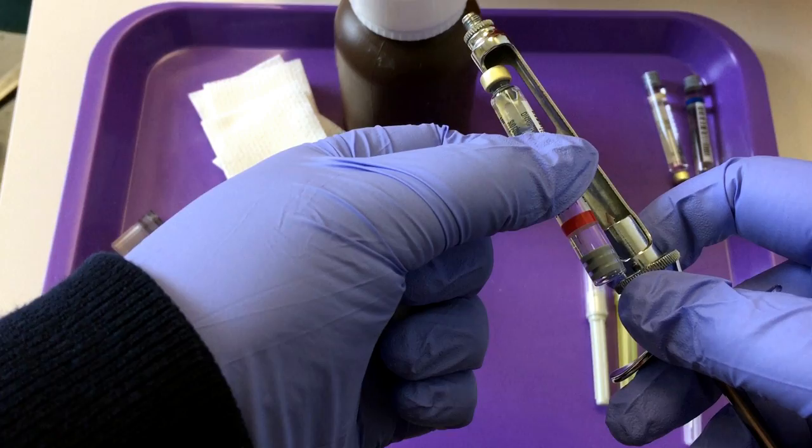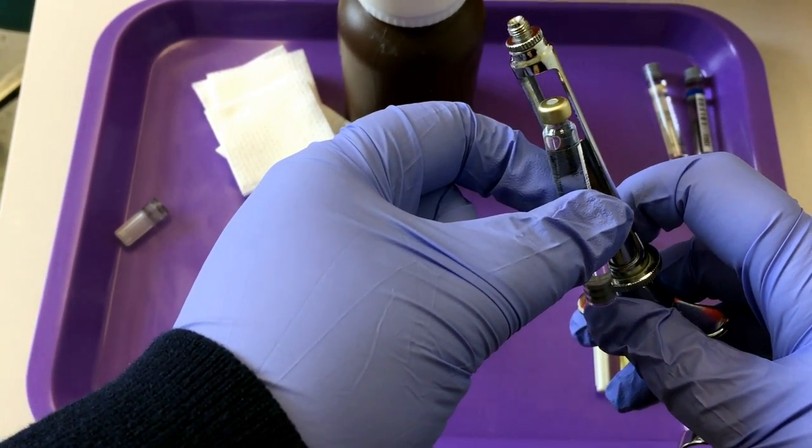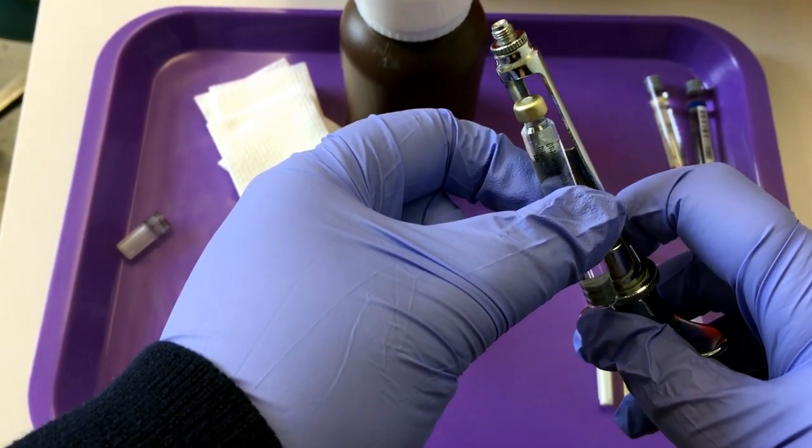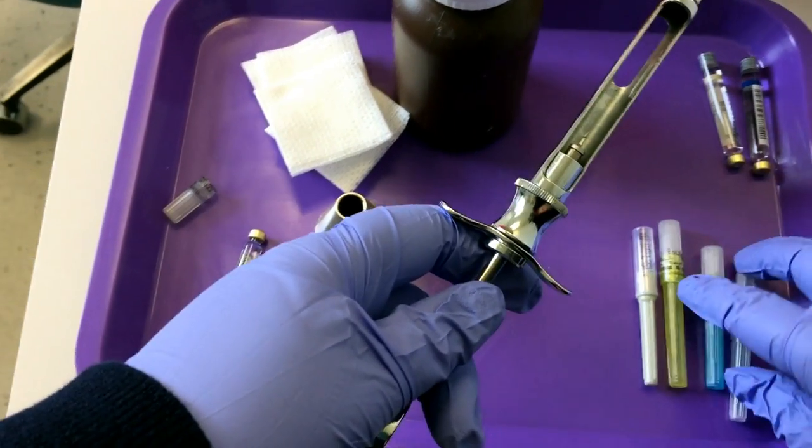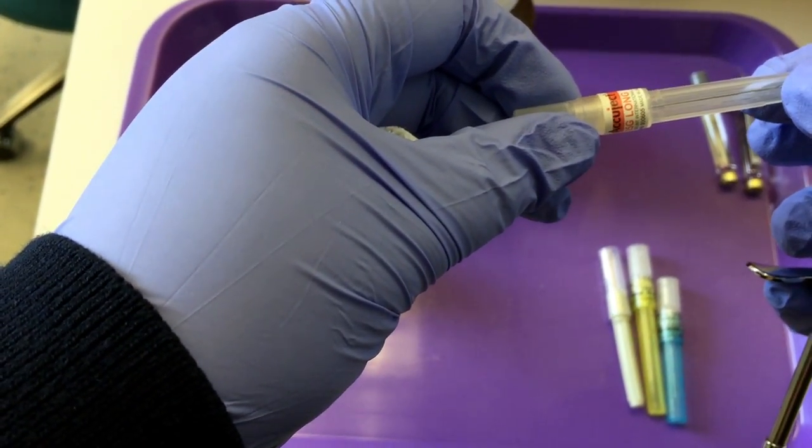If you put the carpule in first, then you're trying to force the stylus of the needle through the diaphragm, and that could pose a hazard if the cap comes loose on the needle. So I teach my students needles first. Needle is the first thing on and the last thing off.